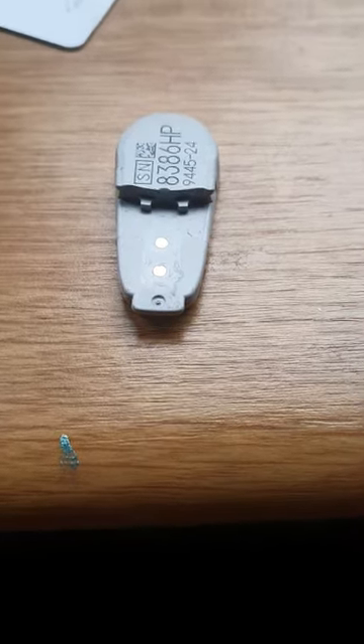Now you'll want to keep that grey bit in the middle. So just get the edge here and break that. Take it out — it should be like that. Place it like this on the countertop so those little gold button things don't get infected with dust and stuff, because if that happens then you're done for.